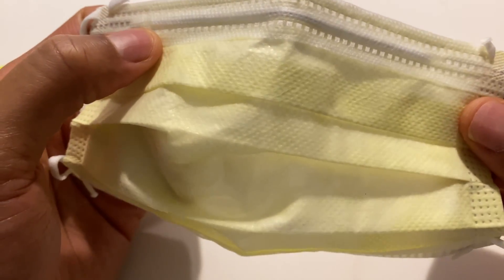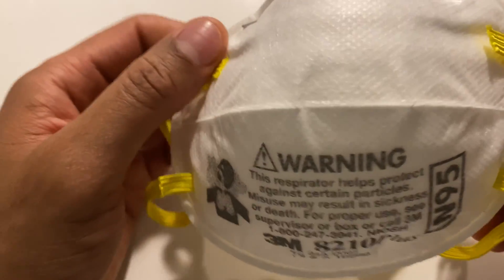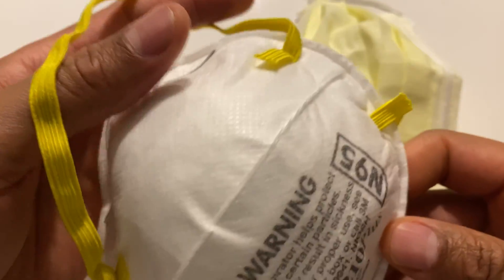So if you have this basic mask, you're really not protected very much. You probably want to get an N95 mask, get it fit tested before you use it, and make sure you have it securely against your face.